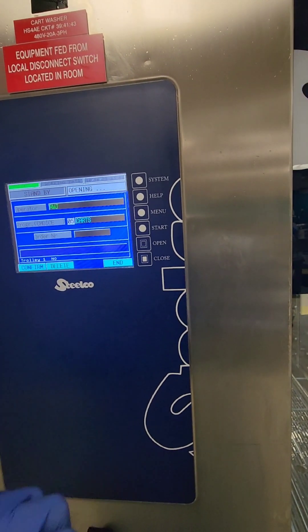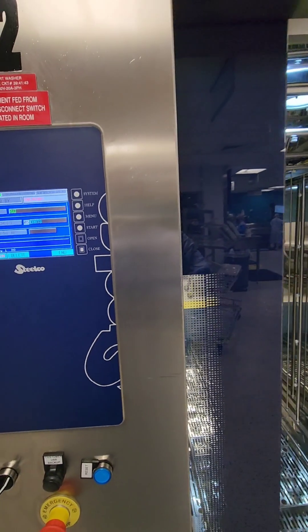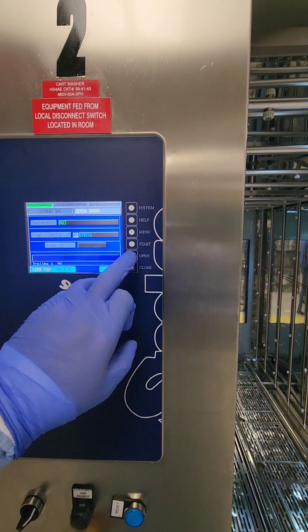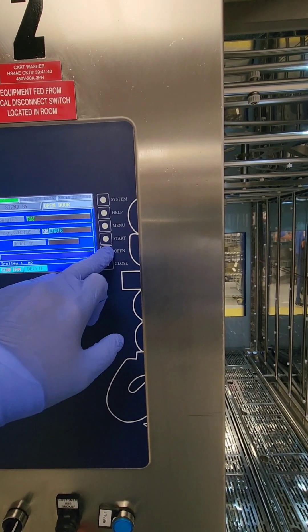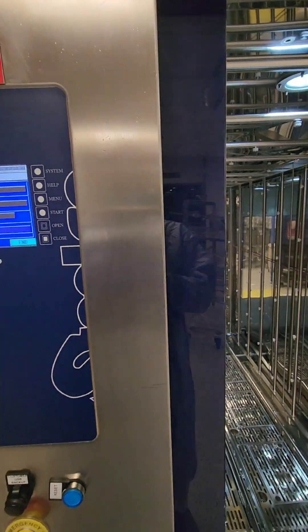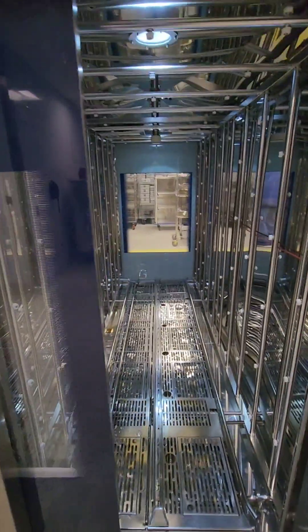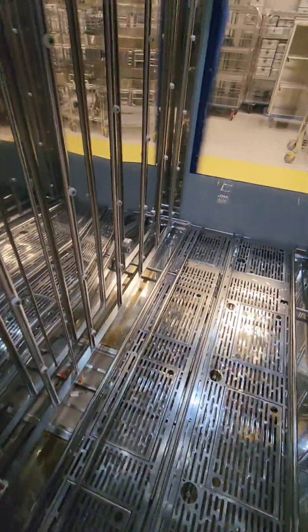On this model, we open the door until it's fully open. To access the drain screen, we need to lift the bottom floor plates up. Hold the open button down for a few seconds until the door starts to move, then release it. The door will partially close and the stop pin on the opposite side that holds the floor grates down will retract, allowing us to pull the floor grates up.